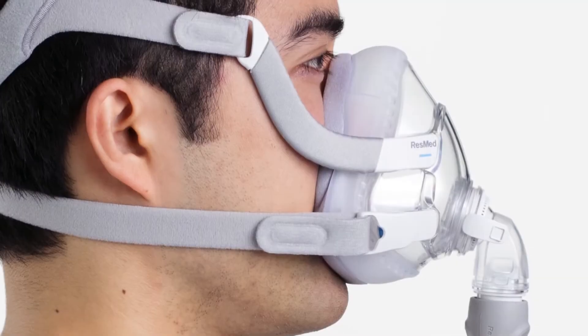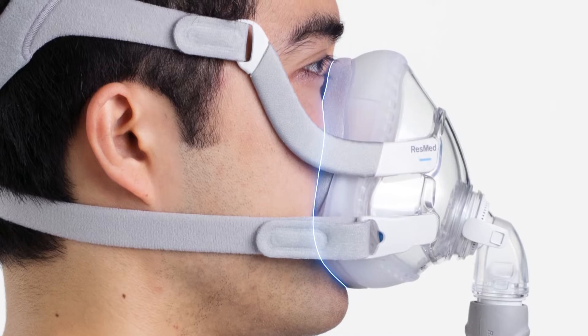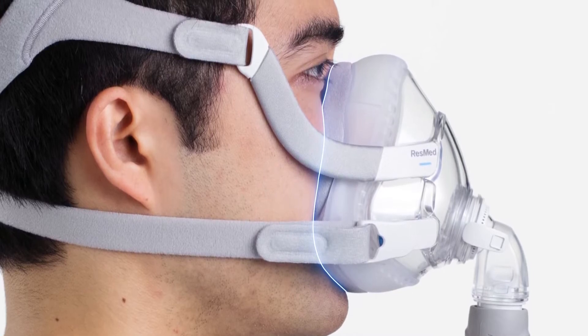An exceptional seal is a product of pressure, flexibility, and strategic shaping to the face.